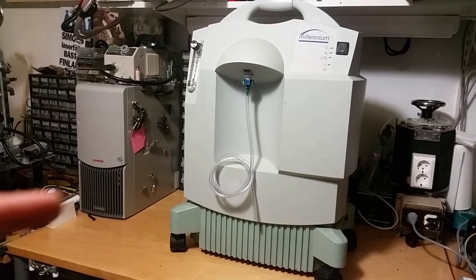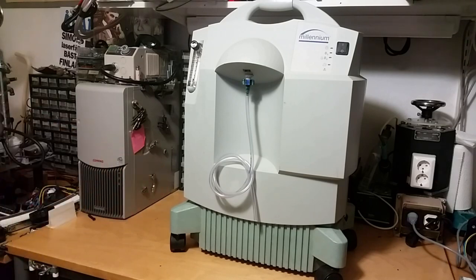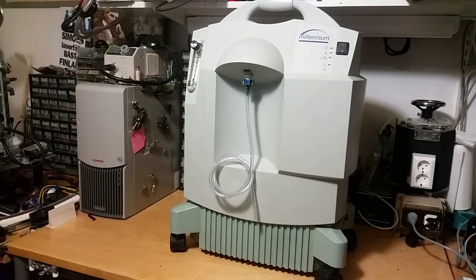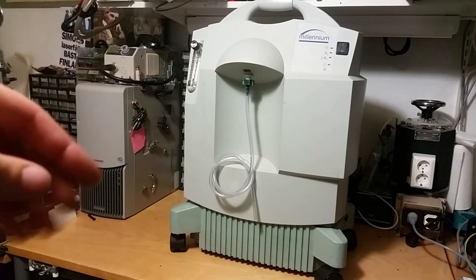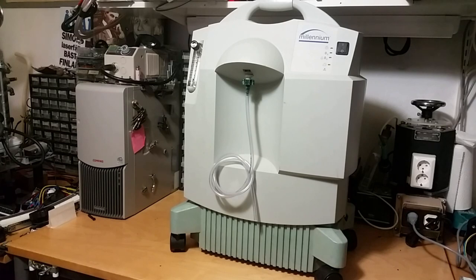We've got a big teardown going on — an oxygen concentrator that we're going to take apart and have a look at. I think I'm going to do a two-part video, just in case it's a little bit too long. In part one, I will just take this apart and talk about how it's working, maybe do some experiments with the output oxygen. And in part two, I will actually take apart the sieve bed and have a look at how the granules operate.